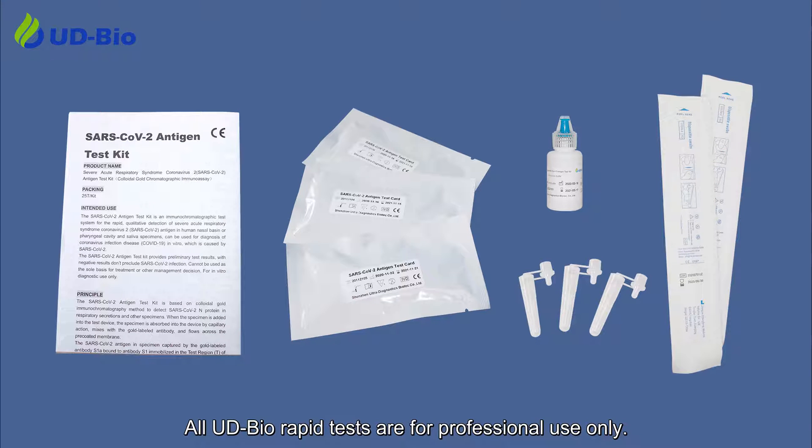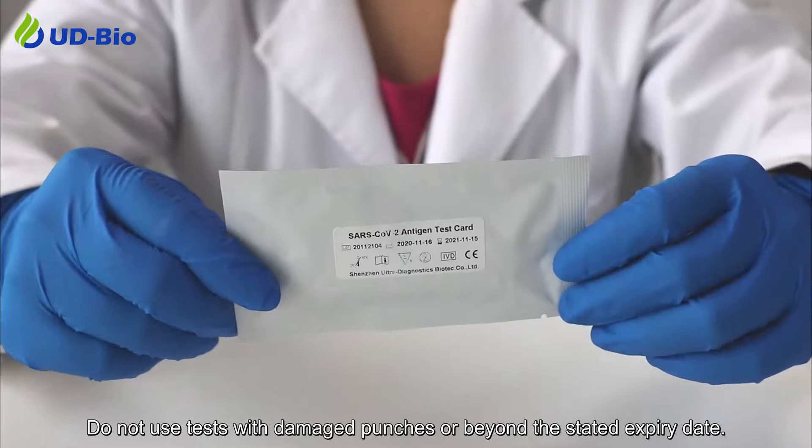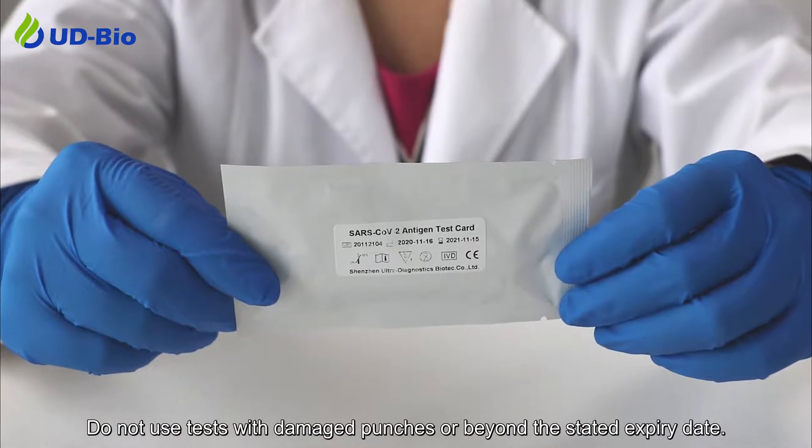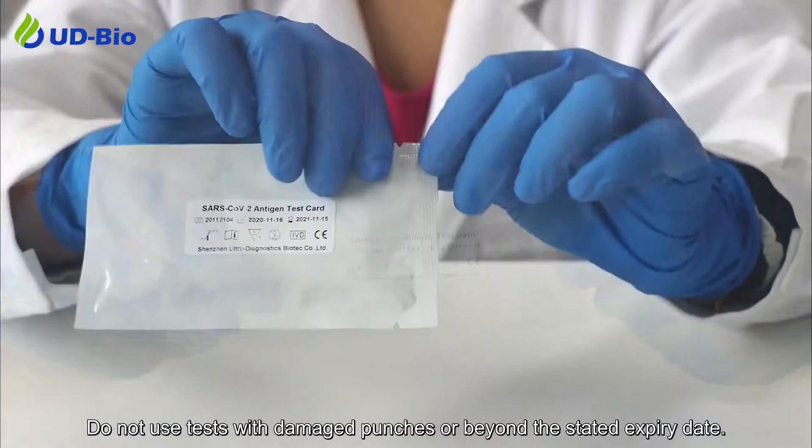All UD Bio rapid tests are for professional use only. Do not use tests with damaged pouches or beyond the stated expiry date.